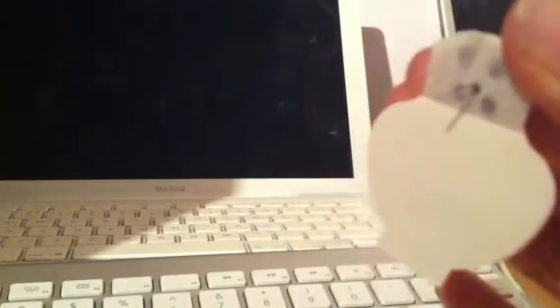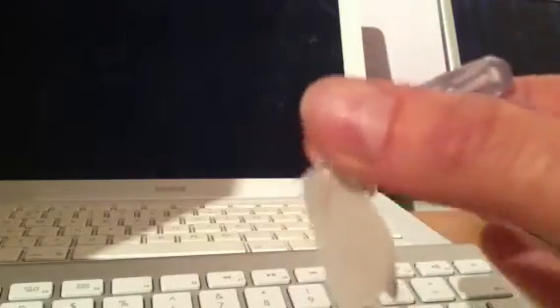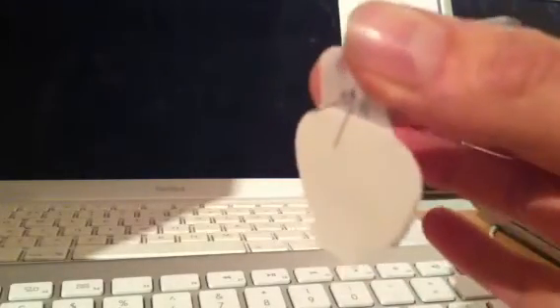Now, this isn't great if you're not good with needles — you're going to have to try and use the applicator. But otherwise, manual insertion is fine. Then there's this part here which is where the transmitter goes on top, and you can either take this off now or leave it on.